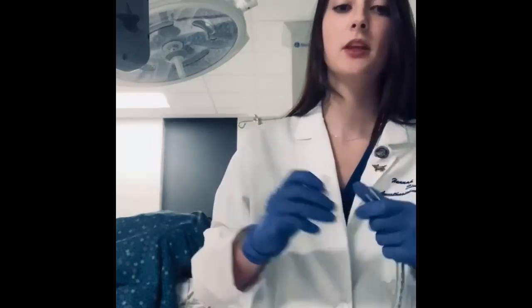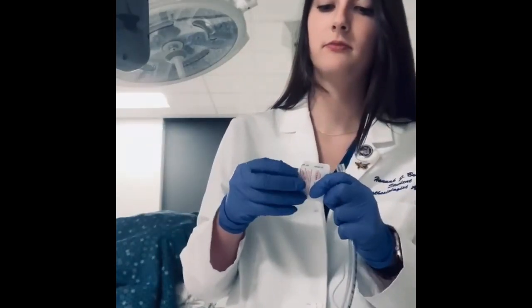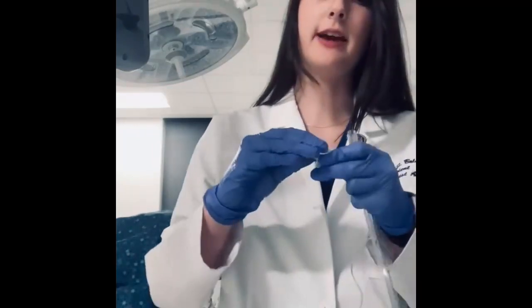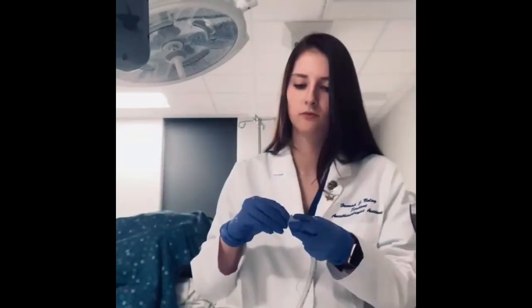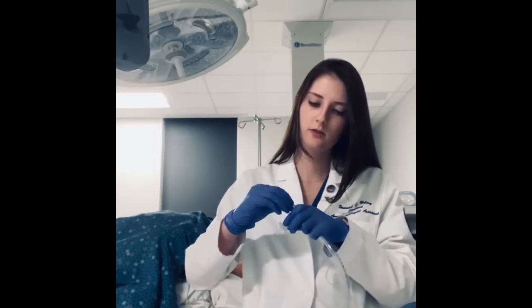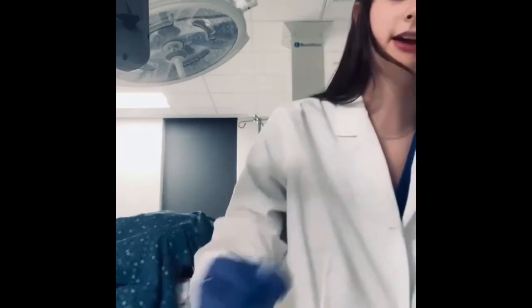So in order to secure this connection — let's say our patient's in prone position — we can simply take an alcohol prep pad and wipe it down like so. And let's get the ETT and connect it.